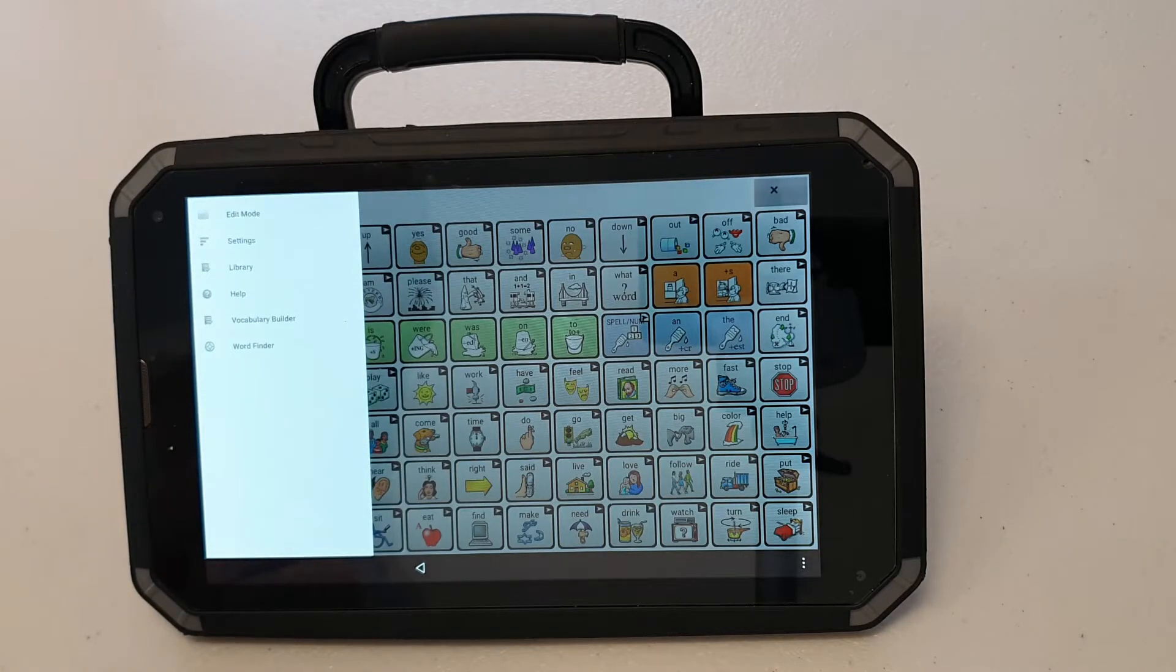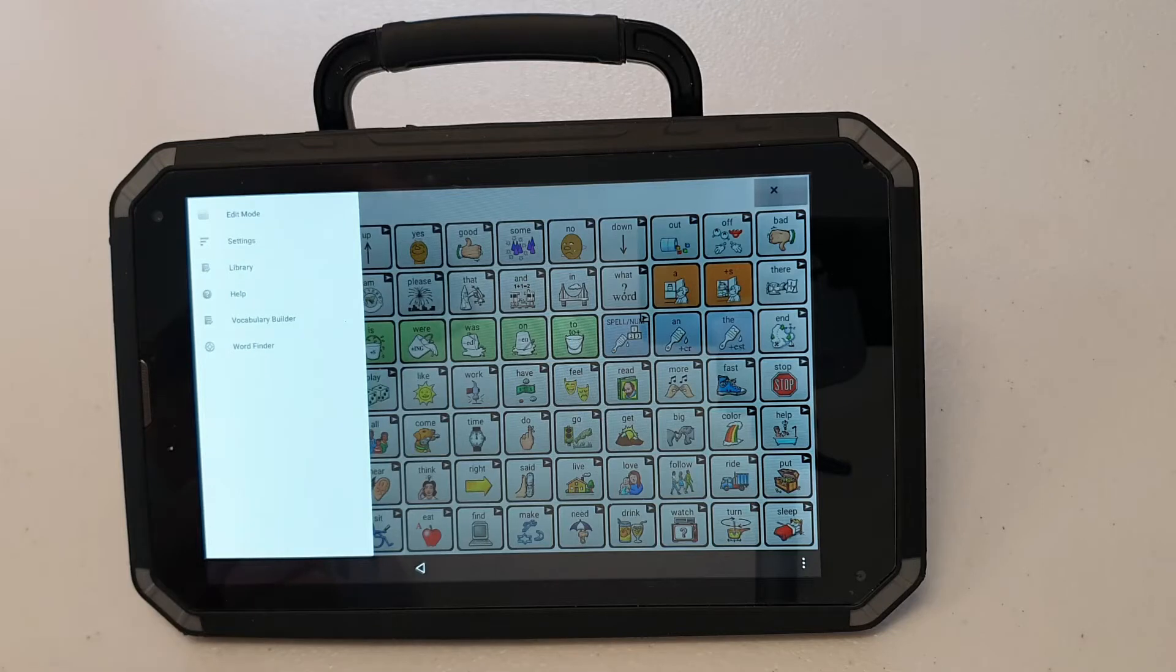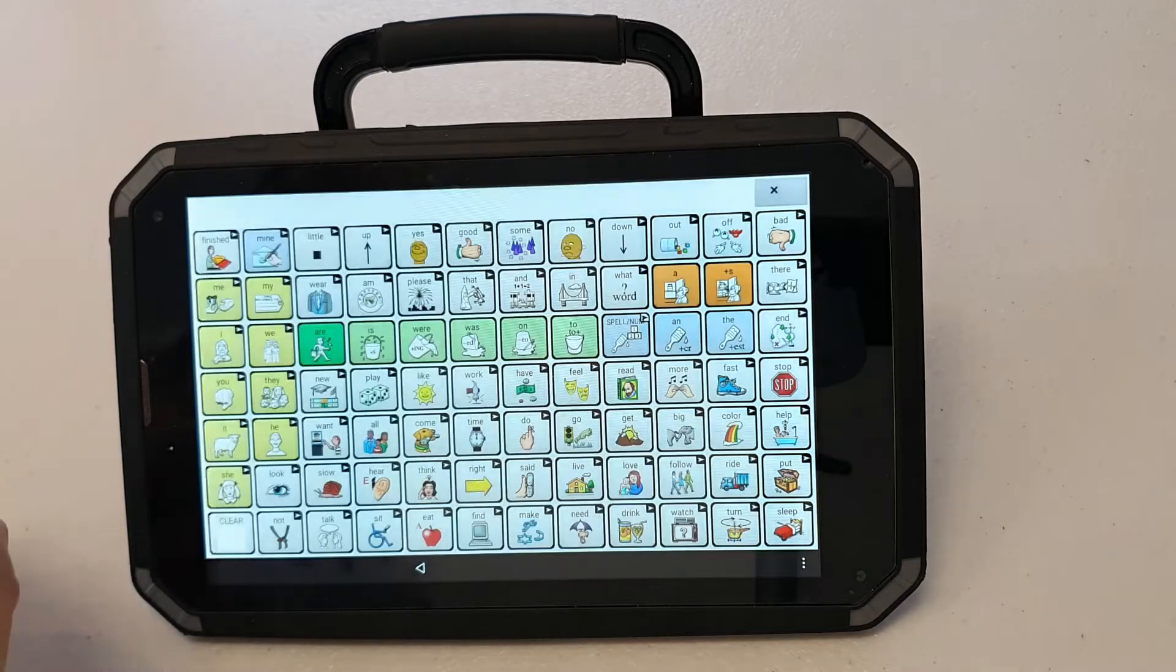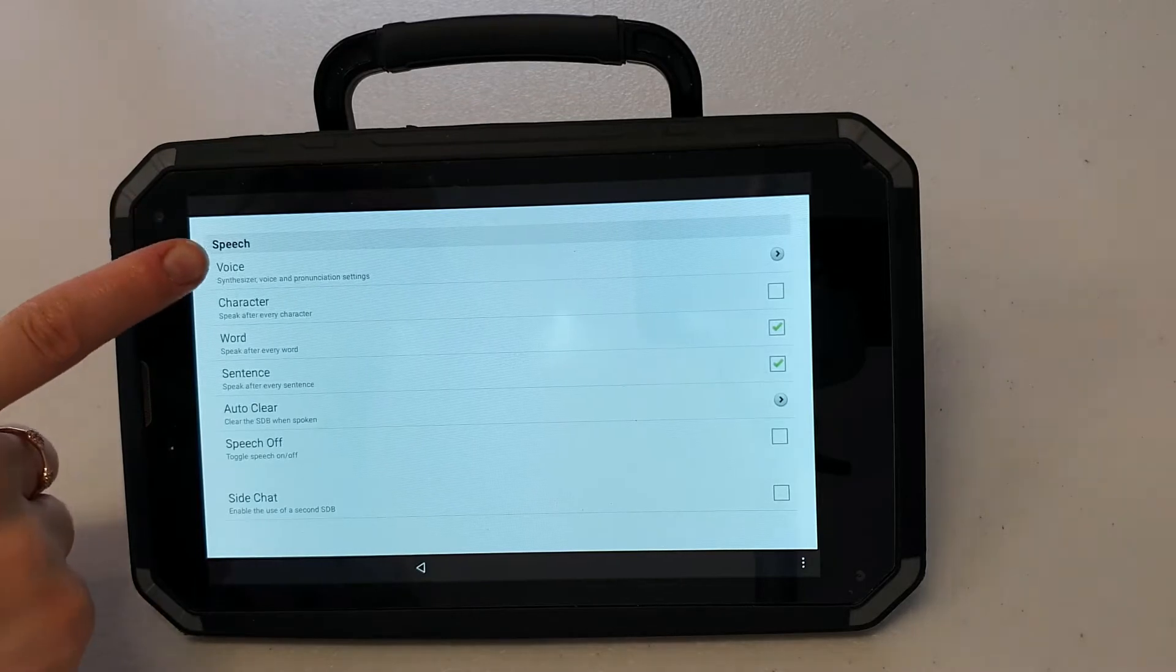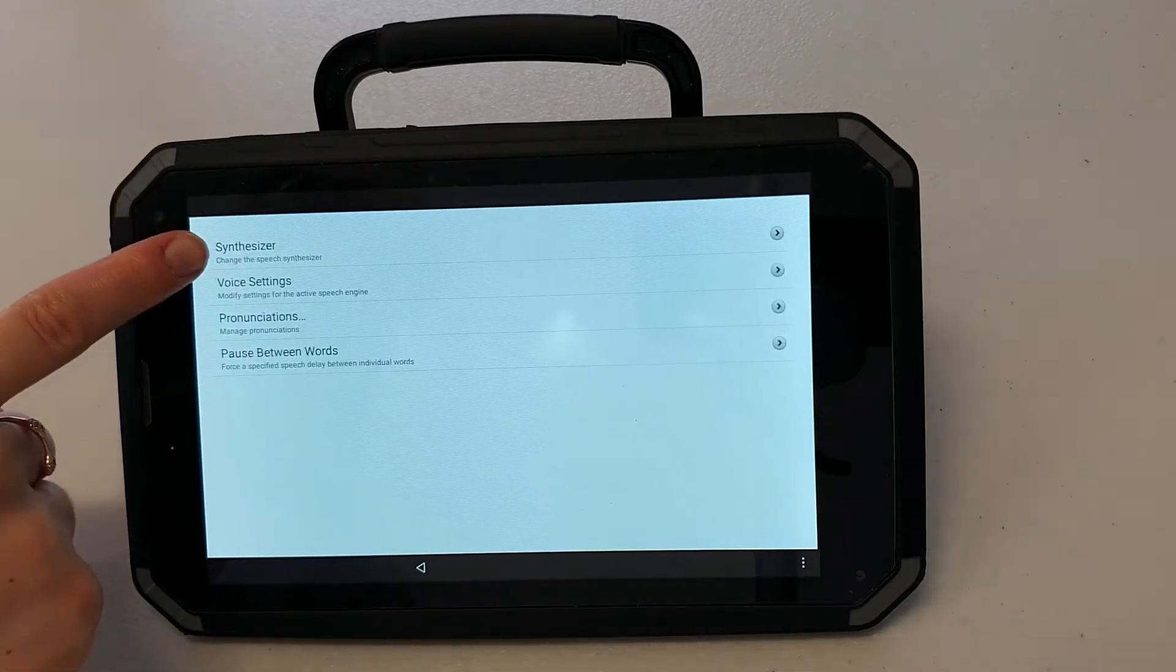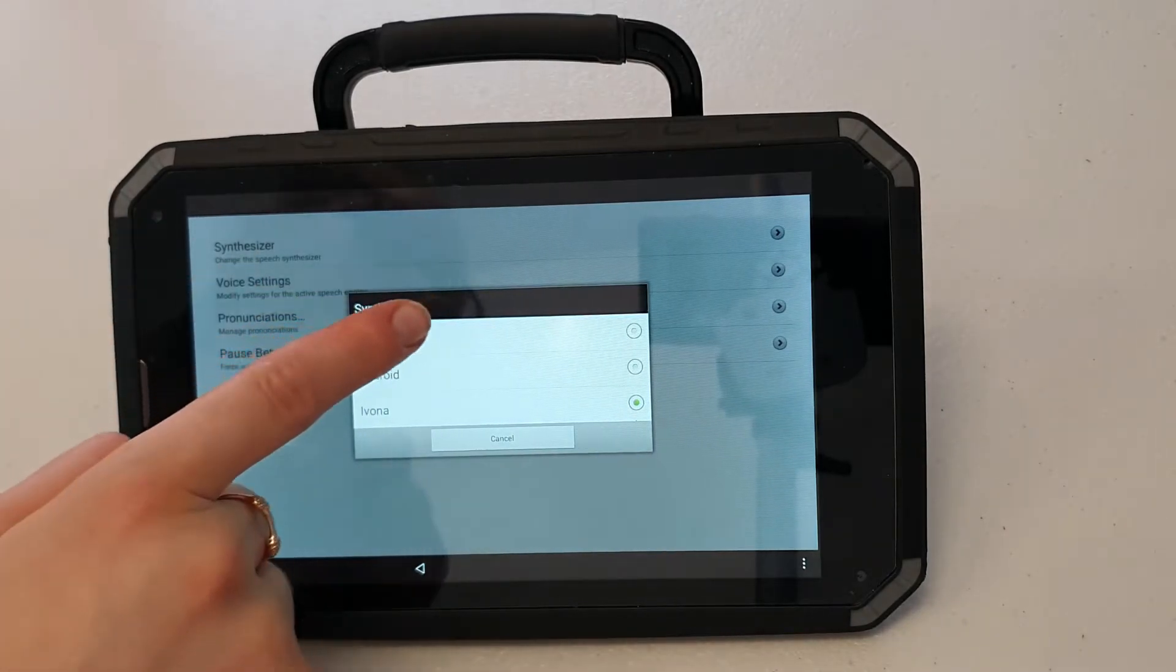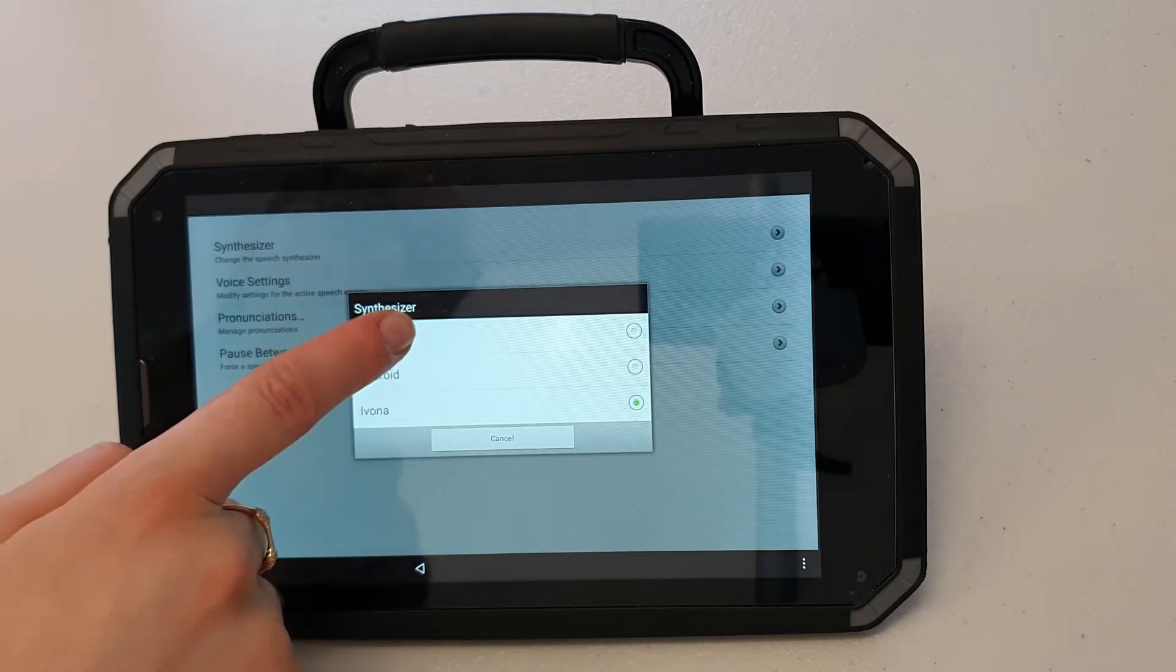I can change a few settings just to make my device customized. The first thing I'm going to do is I'm going to change the voice that I've got for this device. To do that I can go to the settings. I'll go speech output and voice synthesizer. I'm going to choose the Acapella synthesizer. There's quite a few Australian voices on here.